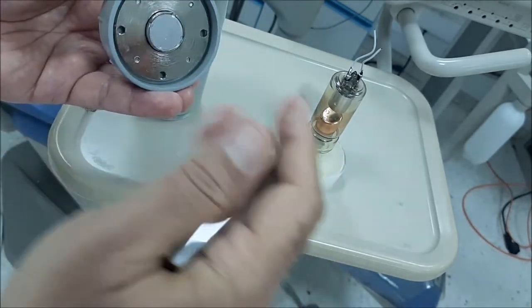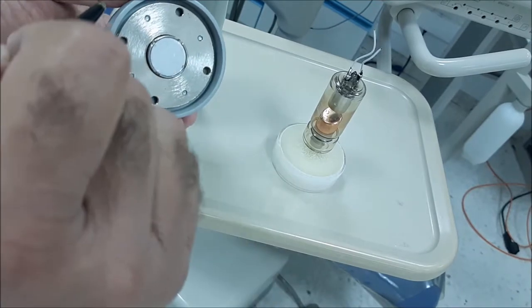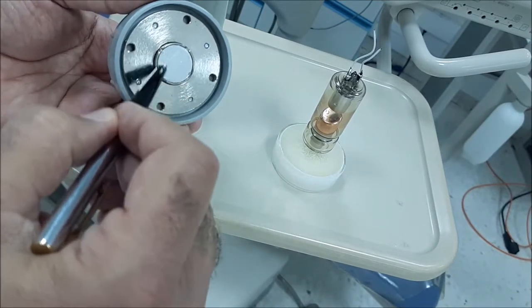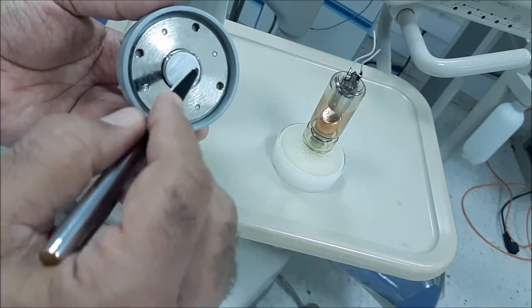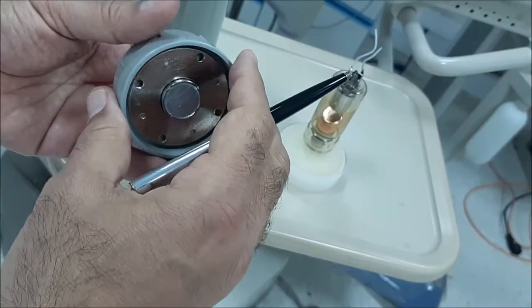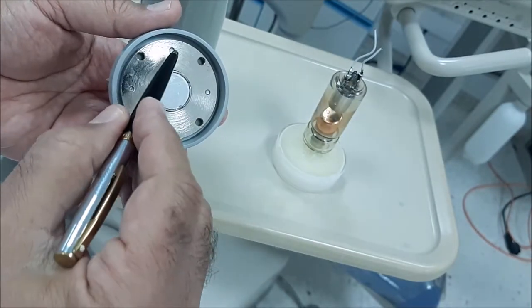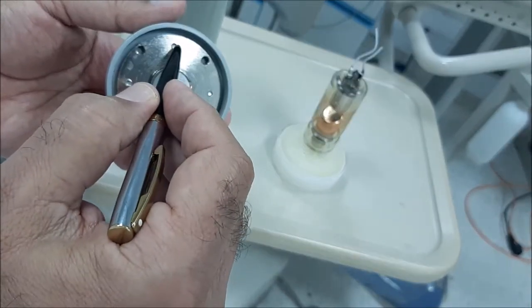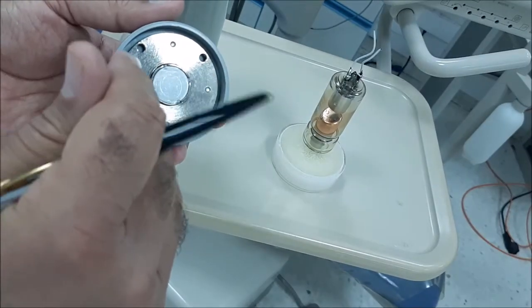The collimator is placed in the way of the x-ray. It will absorb all x-ray and allow only the x-ray into a circle or a rectangle in cases if you're using a rectangular collimator, so that when it reaches to the patient's skin, it will have an x-ray beam diameter of 6 to 7 cm maximum.